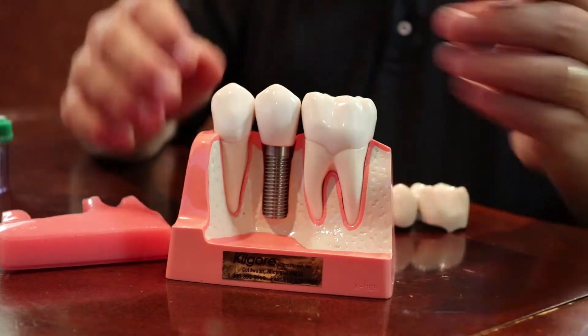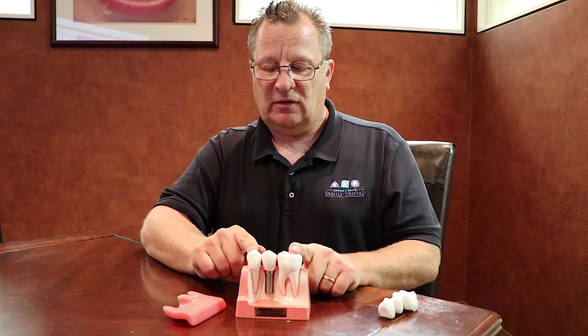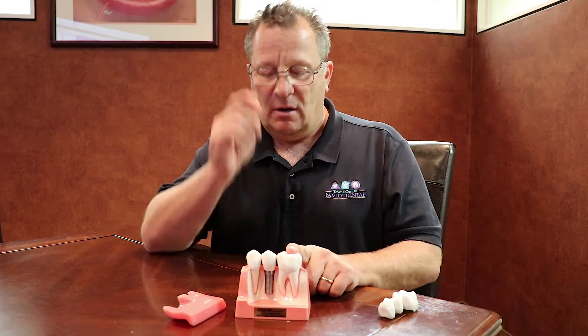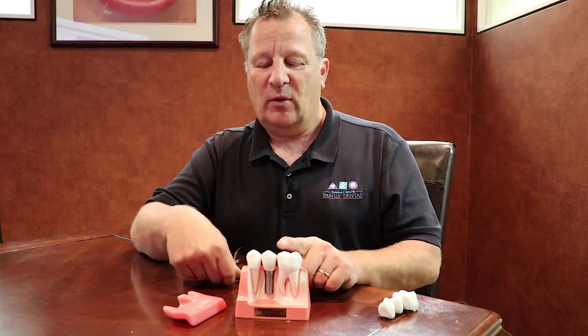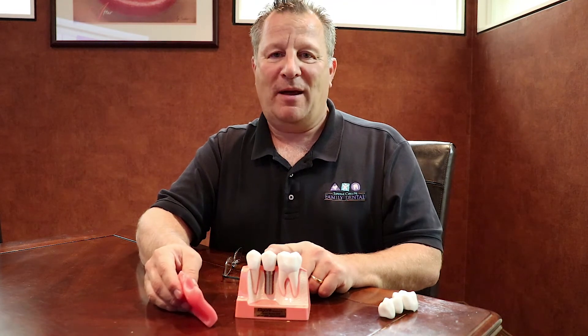Sometimes it's referred to as an abutment, and then onto that abutment is a crown. In a situation like this, we don't have to touch either tooth on either side. So if you have perfectly healthy teeth on each side, very often we find the best option is to replace the missing tooth with an implant.